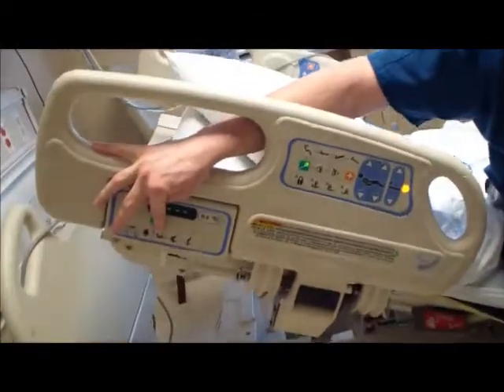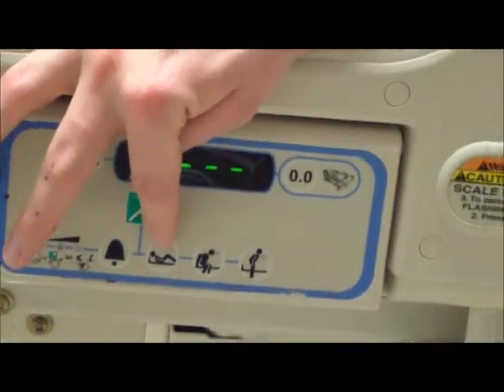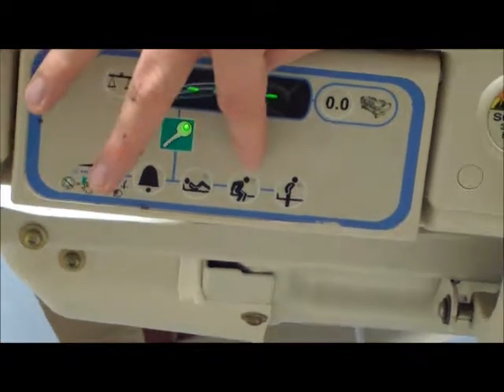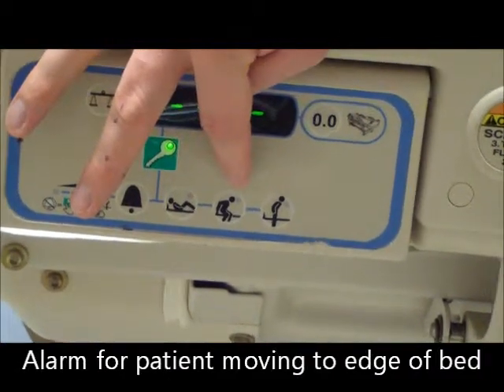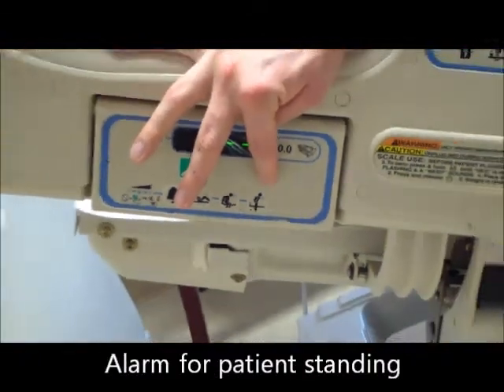This one's the patient, once they get out of a supine position, once they start rolling around, the bed will activate. This is the most sensitive. This is the second most sensitive. This is a patient moving to the edge of the bed. And this one is a patient getting out of bed.